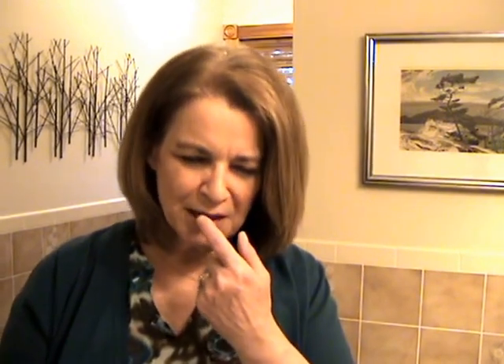Okay, just in that short time I've been using it, my bottom teeth where I used it most — they feel different, they feel smooth. It feels like the head of the toothbrush actually vibrated and the bristles went into all the little nooks and crannies of my teeth. I can still feel a tingling in my lips and in my gums. It's almost indescribable.